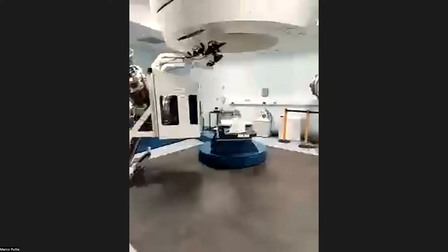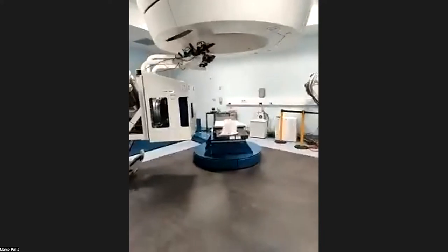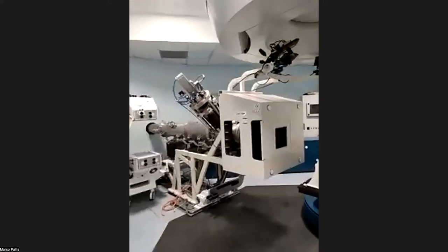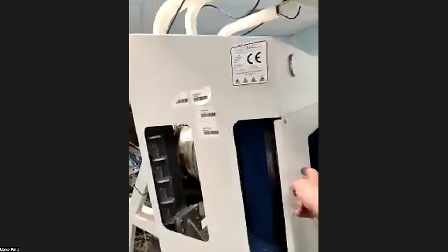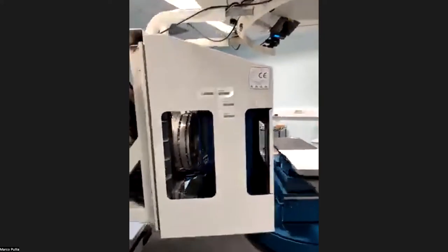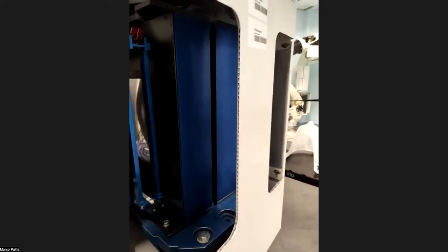Okay, so unluckily or luckily, I don't know, put it as you want, we have problems with the accelerator, so there are no patients in this moment. This is a treatment room. You can see the nozzle here. That's our dose delivery system. It's made by two boxes. Don't know if it's clear, but it's 1 and 2 boxes.